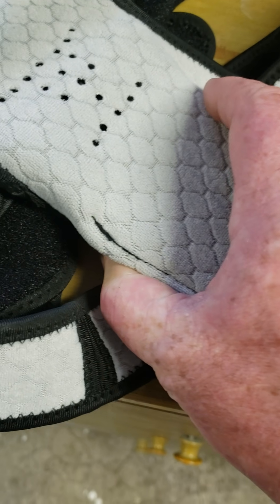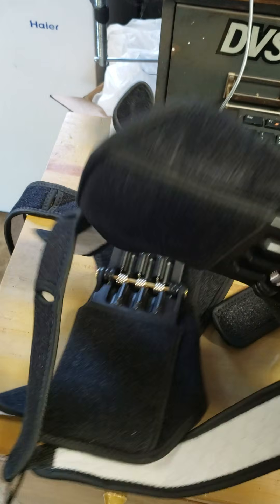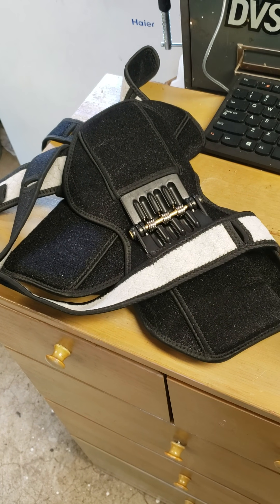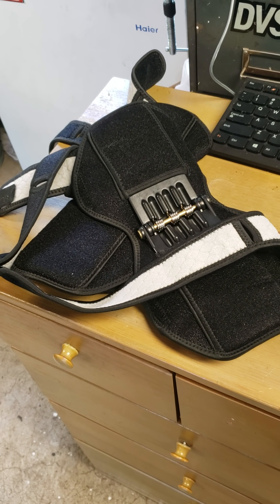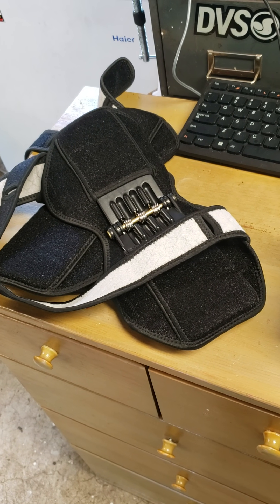See, it's even a bad stitch — they're just made shitty. I'm not sure, but it took a long time to get these; I think it took almost a month. I believe I paid 75 to 80 bucks for them. Total waste of my money, man.